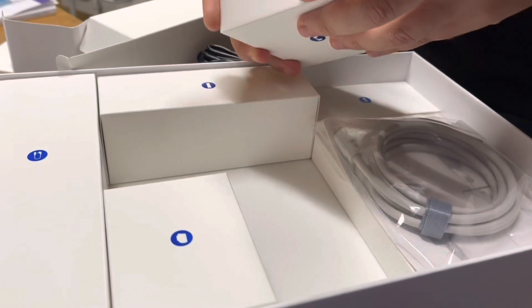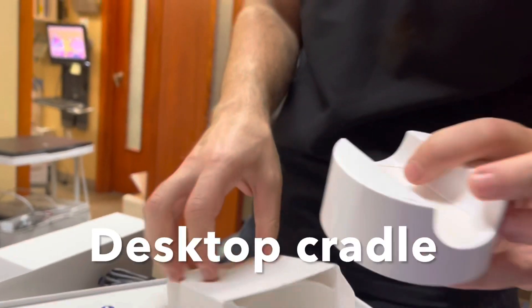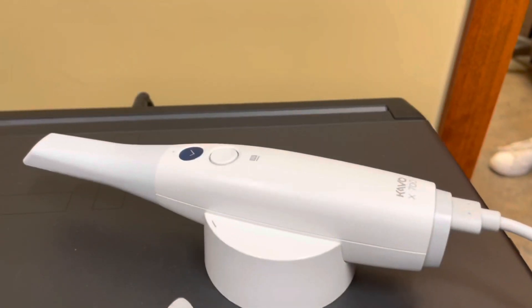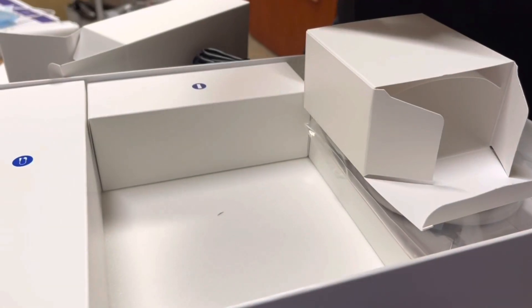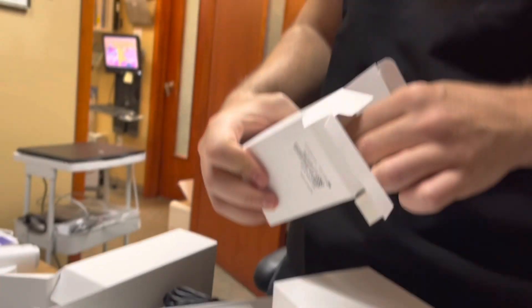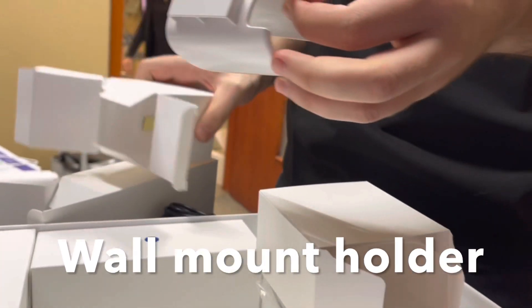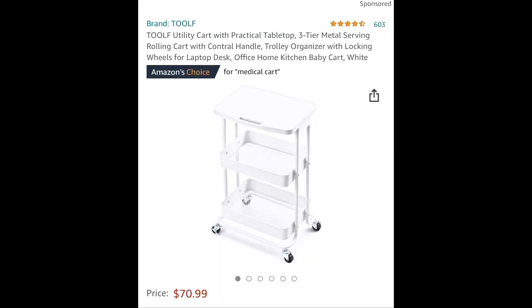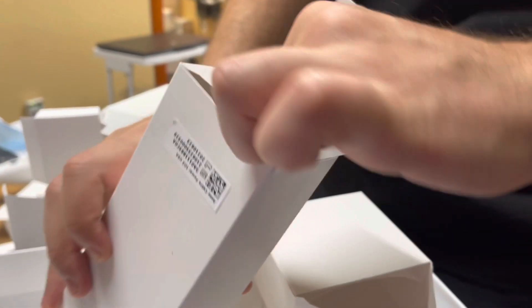We've also got a desktop cradle used to place on your desktop to maintain the protection of the camera when you're not using it. This camera doesn't have to be heated, which is a feature I really like. Then we have a wall mount holder which can be screwed onto your cart. I bought a cart from Amazon for about $71, which is not too expensive and works fantastic — I recommend that.